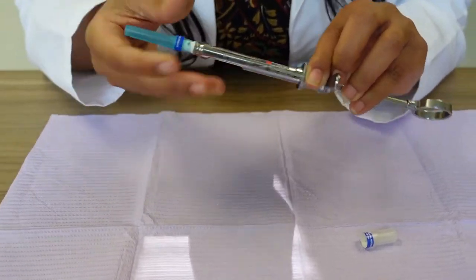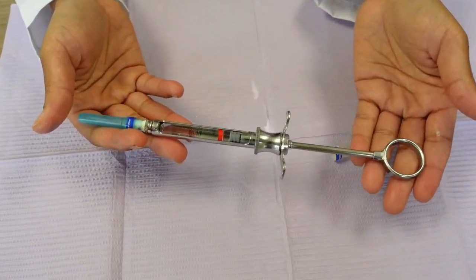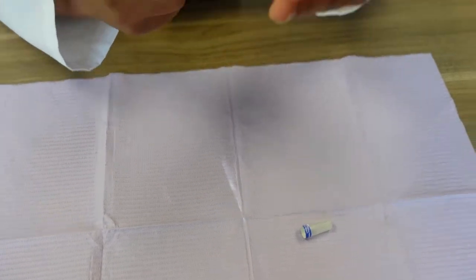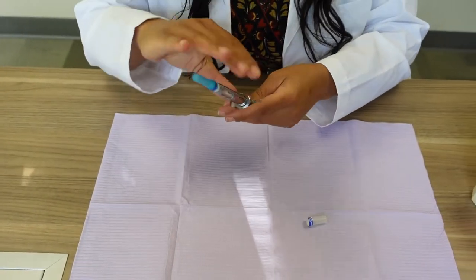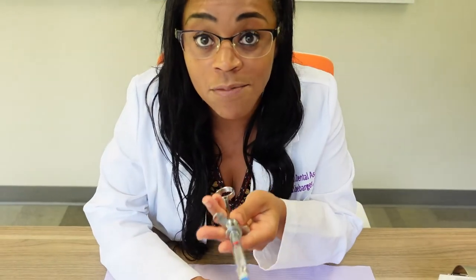There we go. That's how you set up an aspirating syringe. And when you hand it to the doctor, this is how you hand it to the doctor. Not like this. This is the wrong way to hand an aspirating syringe to a doctor.